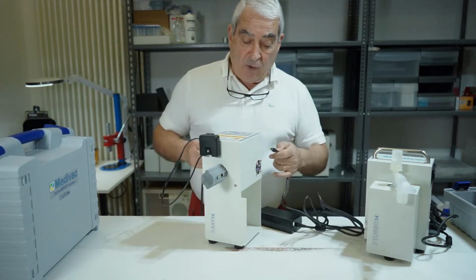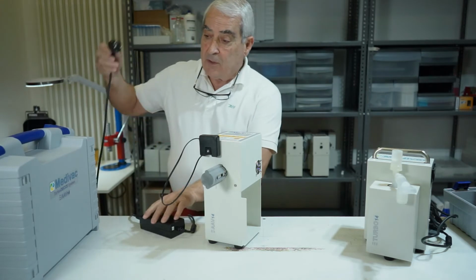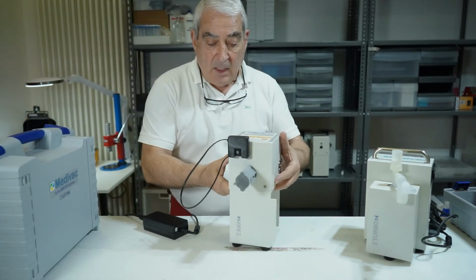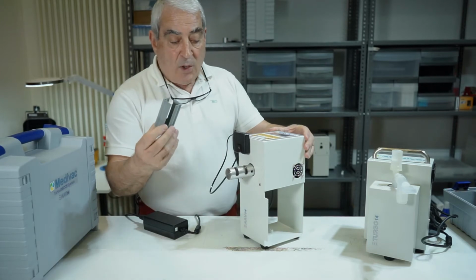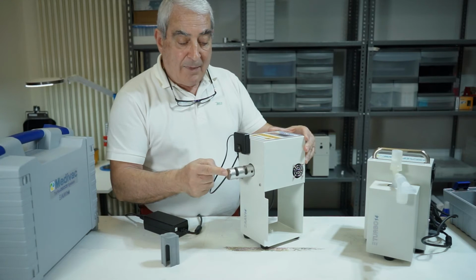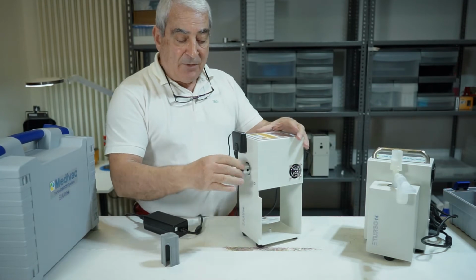As well as the turbo, the device is connected to the power through its power supply unit and the power cord. The cap that protects the mechanical shutter, designed to prevent damage to users who can accidentally introduce their fingers in the actuator, is removed.